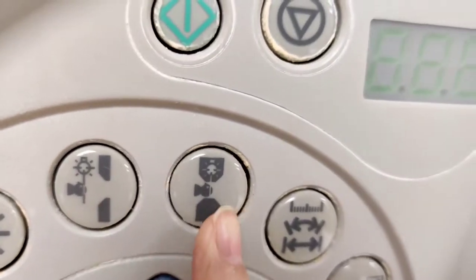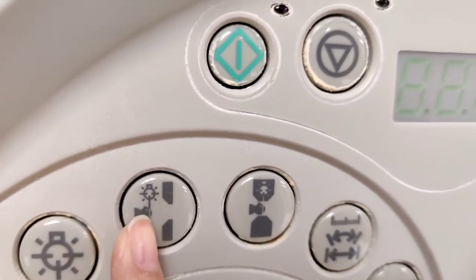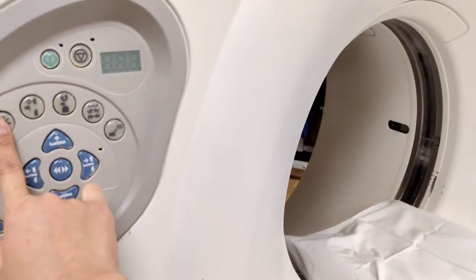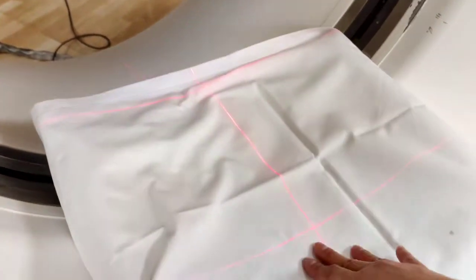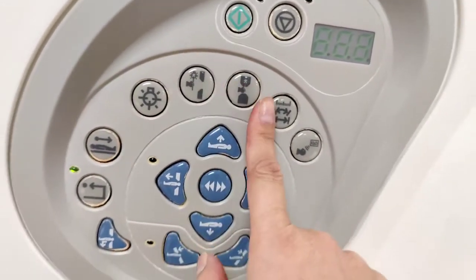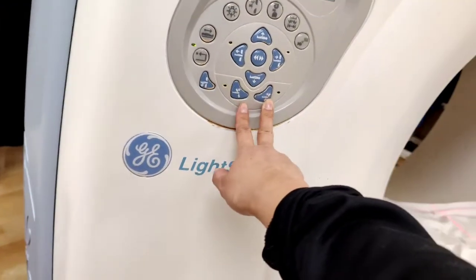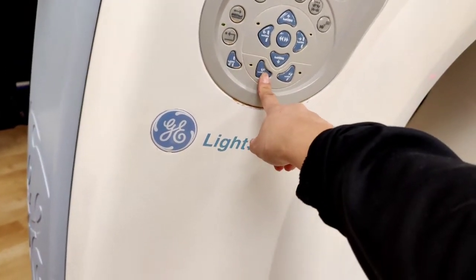This is your inside light and this is your outside light. When the person is in the gantry, the light is inside; when they're outside the gantry, the light is outside. This is the light button — when you click it your light comes on, either outside light or inside light, depending on where you zero it out. This is zeroing it out. The gantry also tilts — some machines don't tilt, but this one actually does.